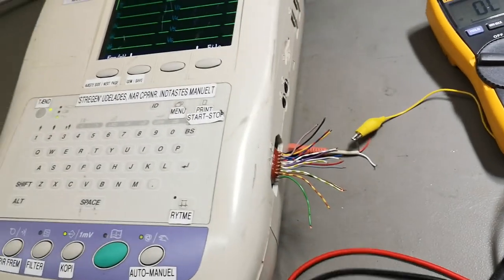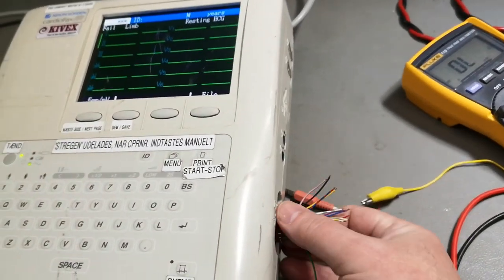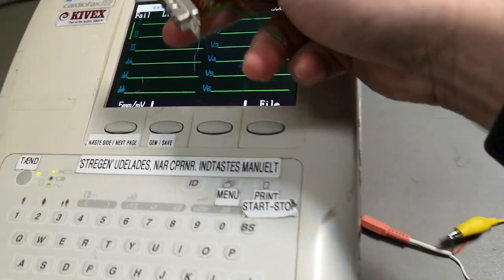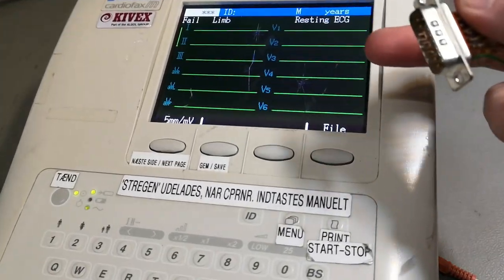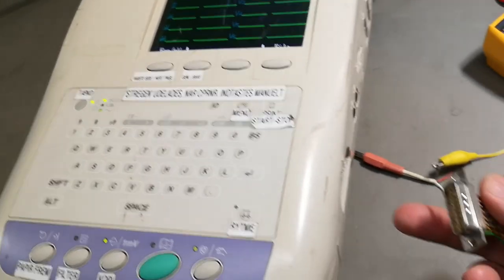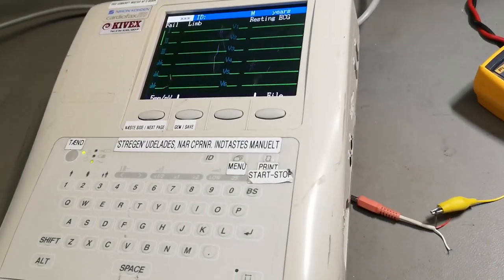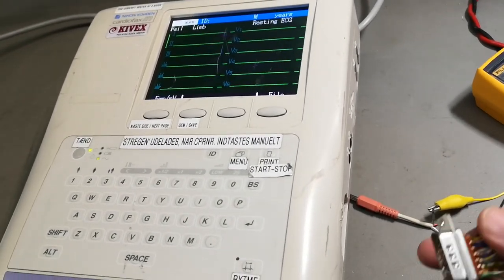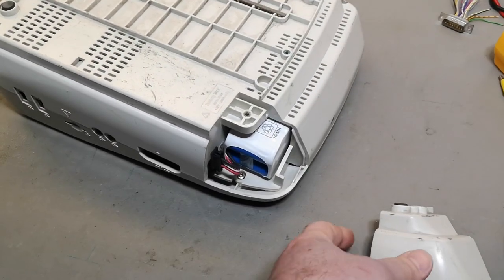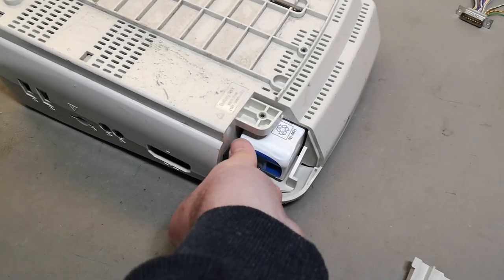So far I don't understand it — I think maybe this interface is completely dead. I once thought when I plugged it in and out I saw a tiny little response on one of the traces, so I had the idea that maybe it's alive, maybe there's an analog interface here I could access, because that could be super cool. But so far no such luck.